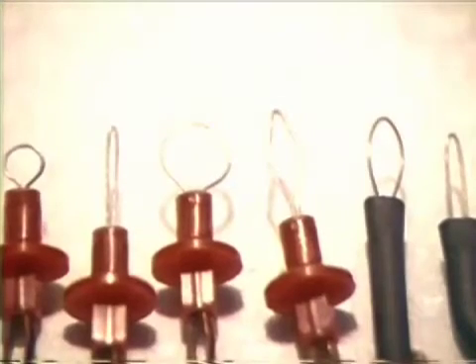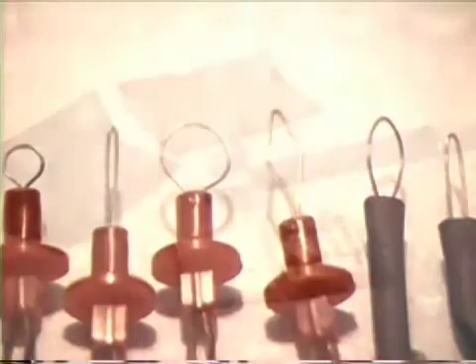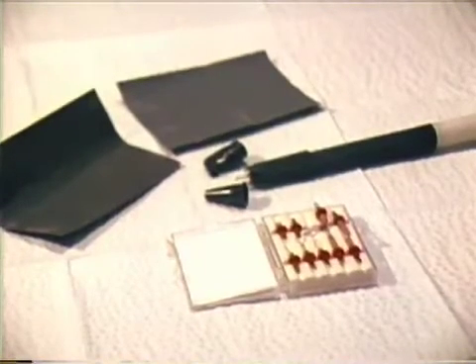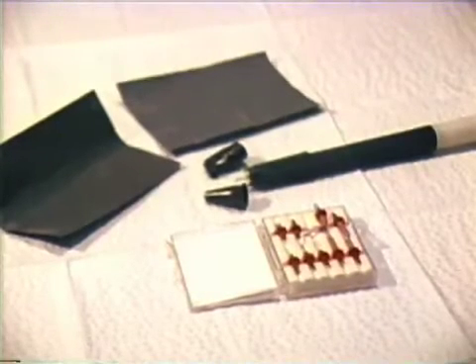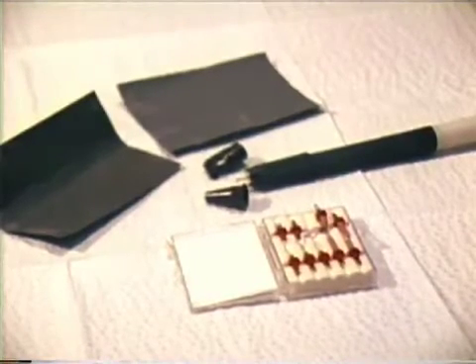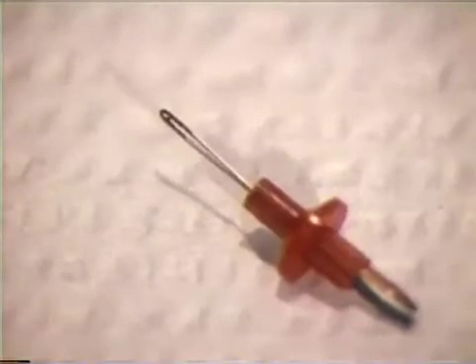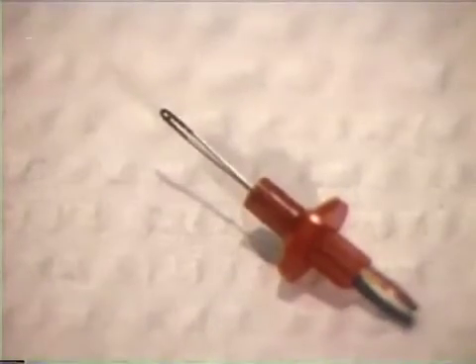A variety of electro tips for cutting are available. Configurations from straight wire to J-wires to loops are helpful when operating in areas with difficult access. Electro tips should be kept clean to bare metal, best accomplished with fine grit abrasive paper, and should be done before and occasionally during the procedure.